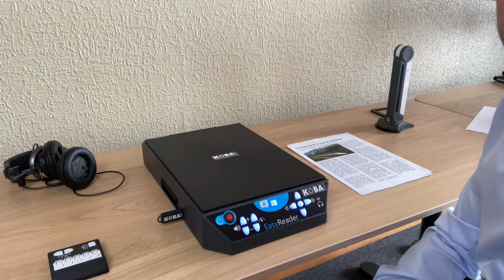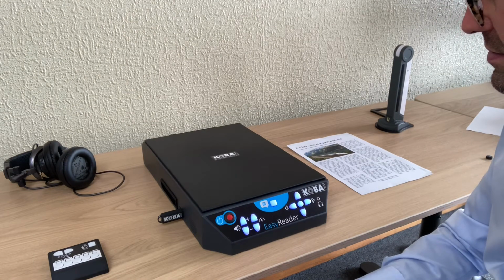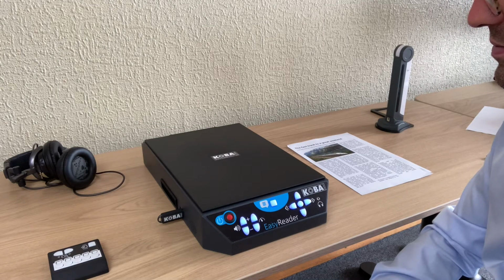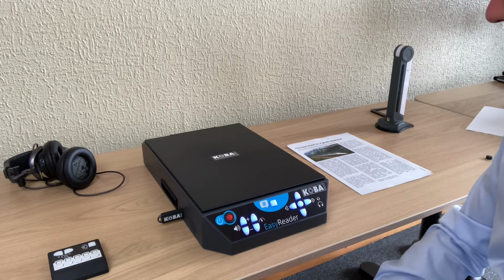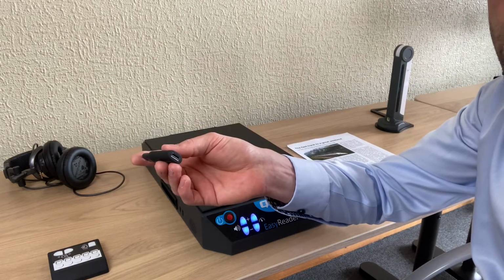Now it's saving. Page 1 of 4 completed. Yeah, and it will give you an update, of course. Page 2 of 4 completed. Page 3 of 4 completed. Saving, please wait. Ready. The USB stick is disconnected. Okay, so that's it. Now everything is on the USB stick.